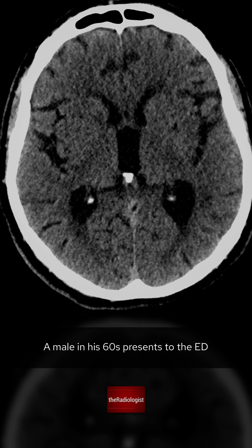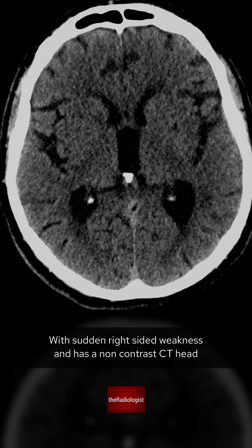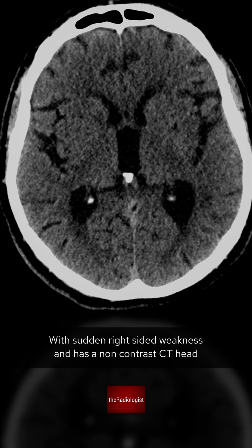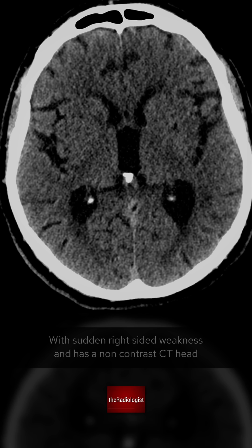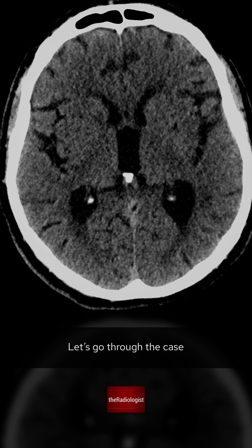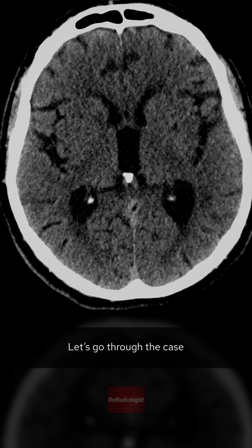A male in his 60s presents to the ED with sudden right-sided weakness and has a non-contrast CT head. What's the diagnosis? Let's go through the case.